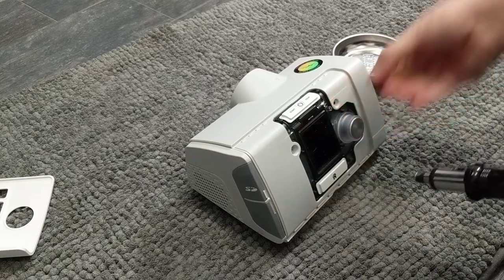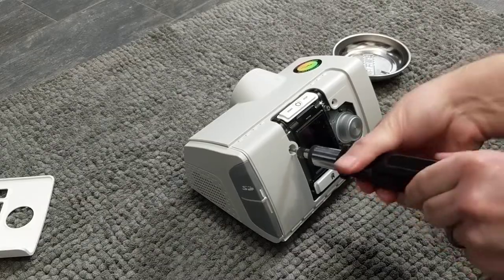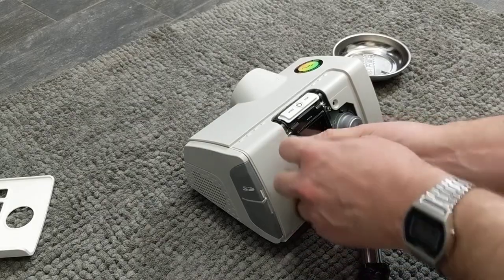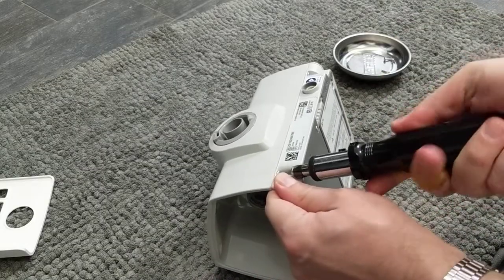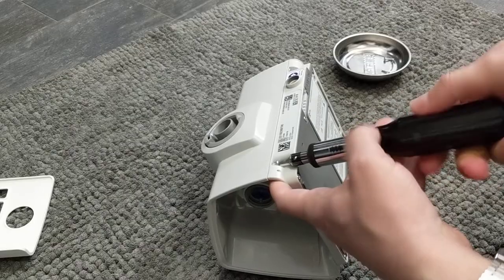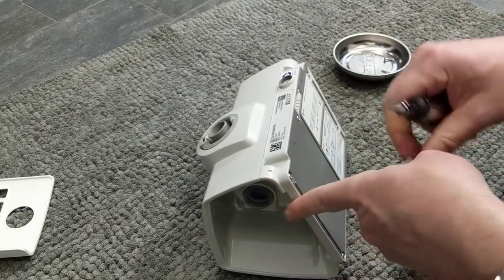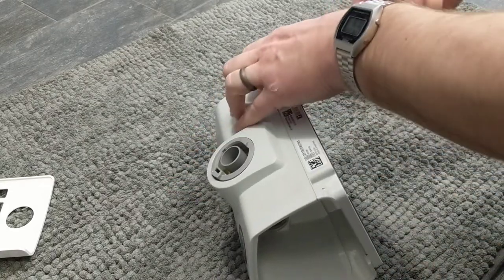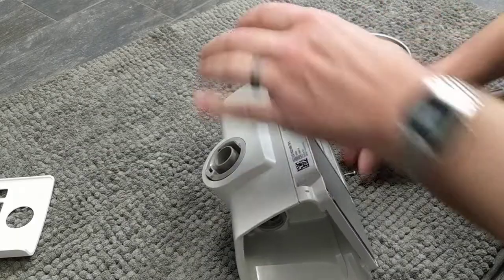I'm not an expert handyman or expert medical anything — I just have one of these. I've done a couple of them actually. I do like taking things apart, and I do have sleep apnea. This is my third one to take apart for a friend, and I bought it used. My first one smelled like nasty peppermint and it would not clear out. The second one smelled like old rags. This one smells like it's been sitting in a dusty warehouse.